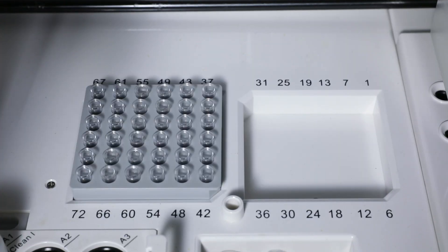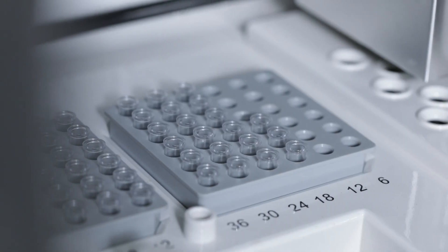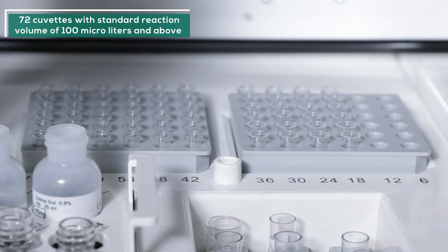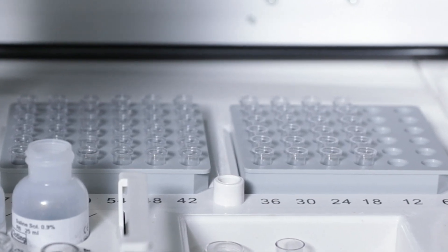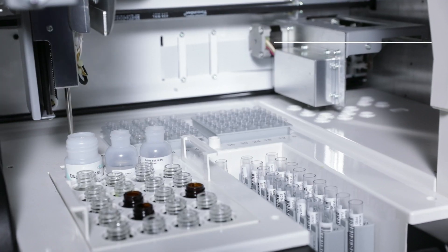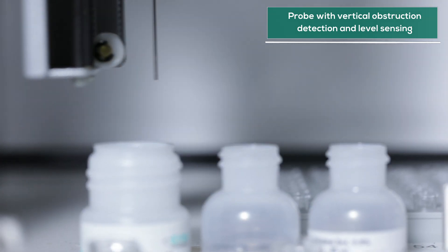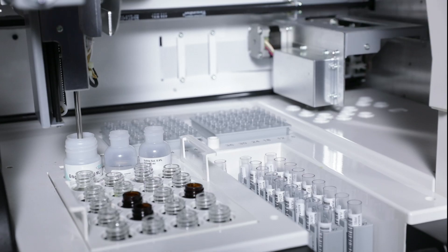Standard reaction volume of 100 microliters and above. 72 cuvettes can be accommodated in two holders of 36 each. Aspiration pipette with capacitive detection ensures dispensing reagents or dilution of calibrators and samples.